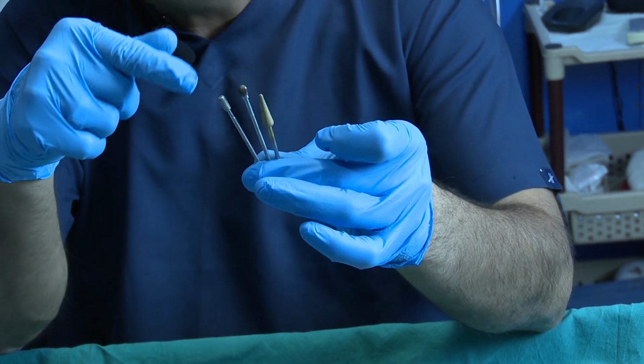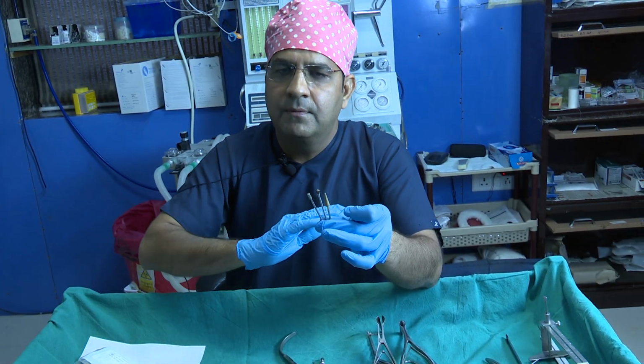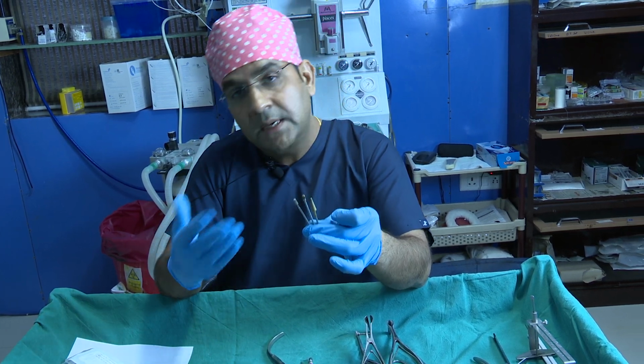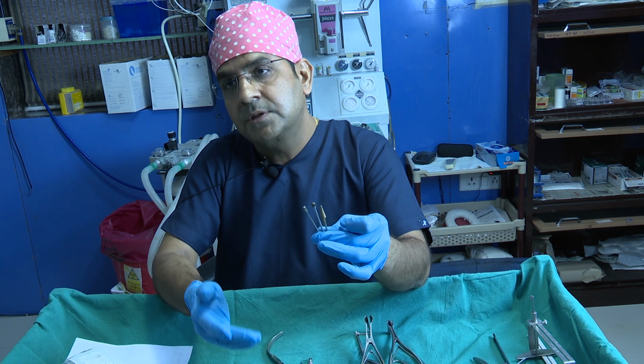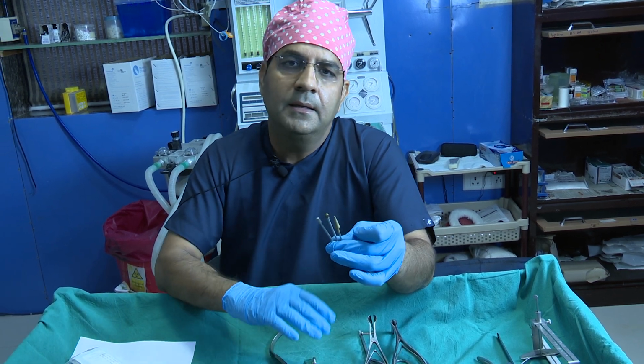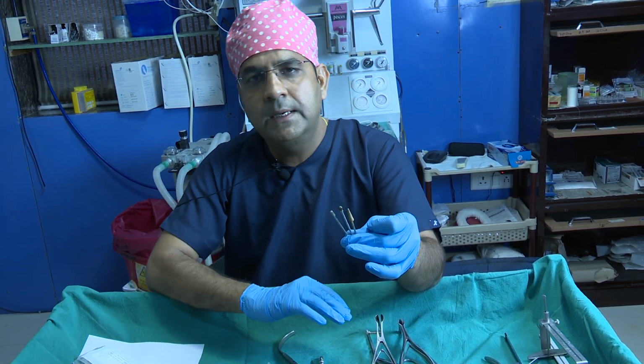These different types of burr we usually use in the simple Marathon drill, when you have a patient with a big bump, or suppose your patient has a thick lateral nasal wall and you realize it's very difficult to make the lateral osteotomy.